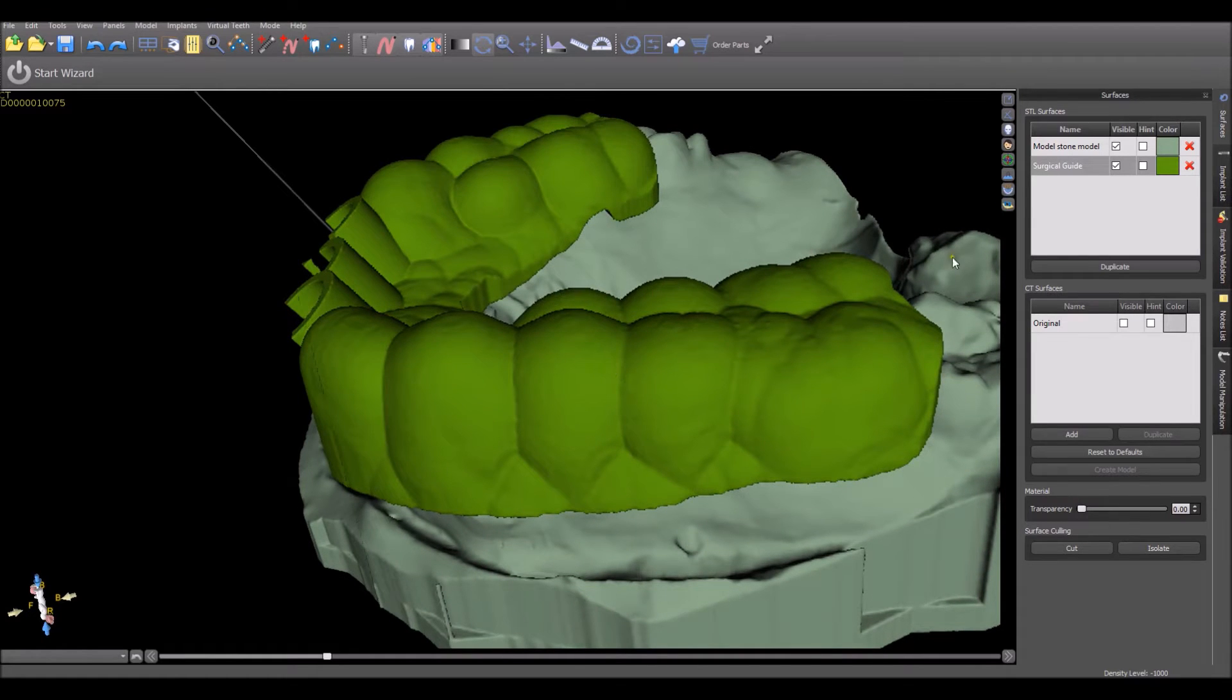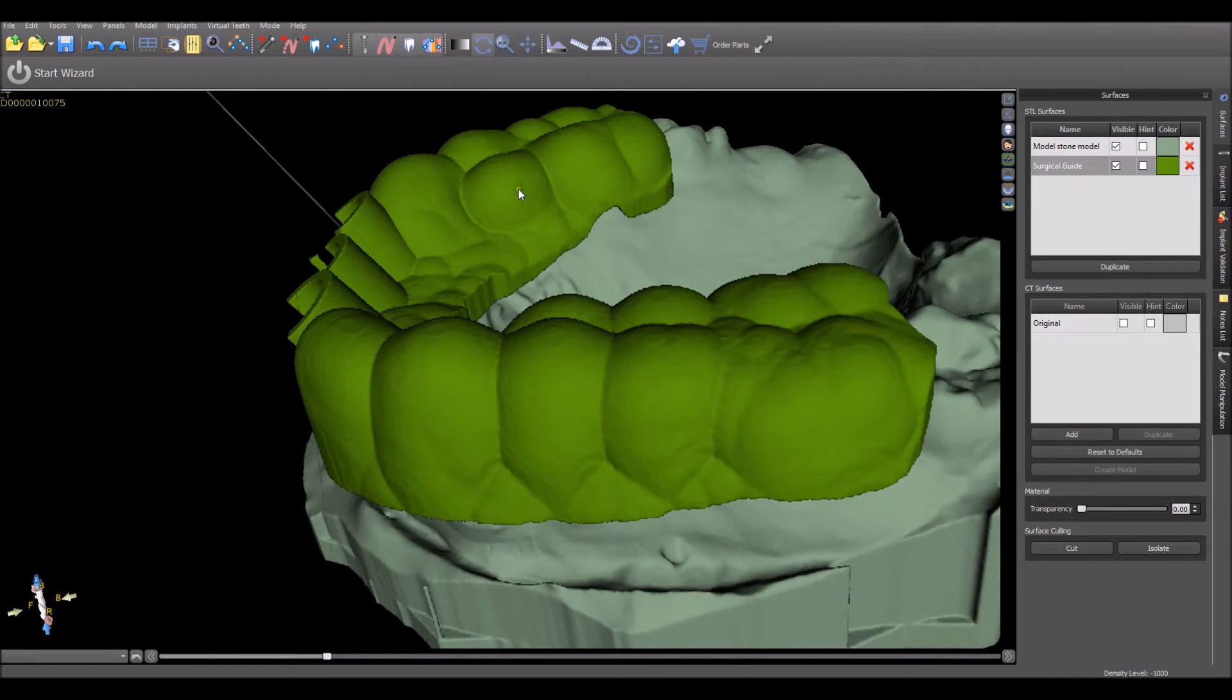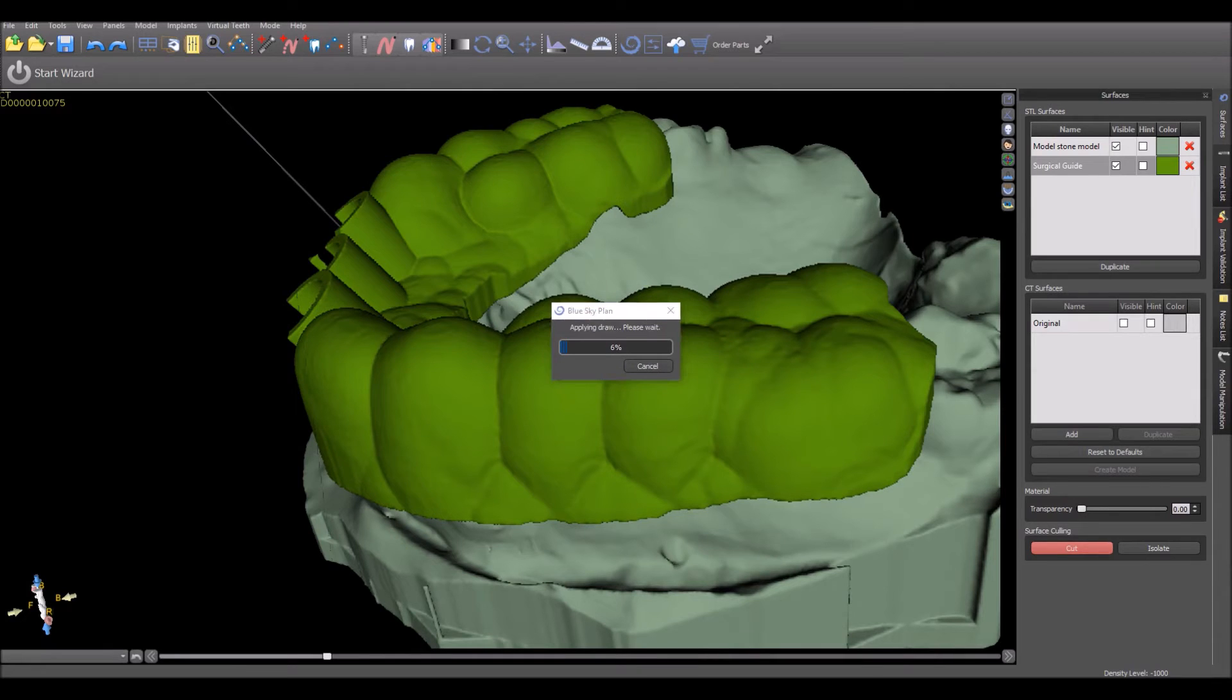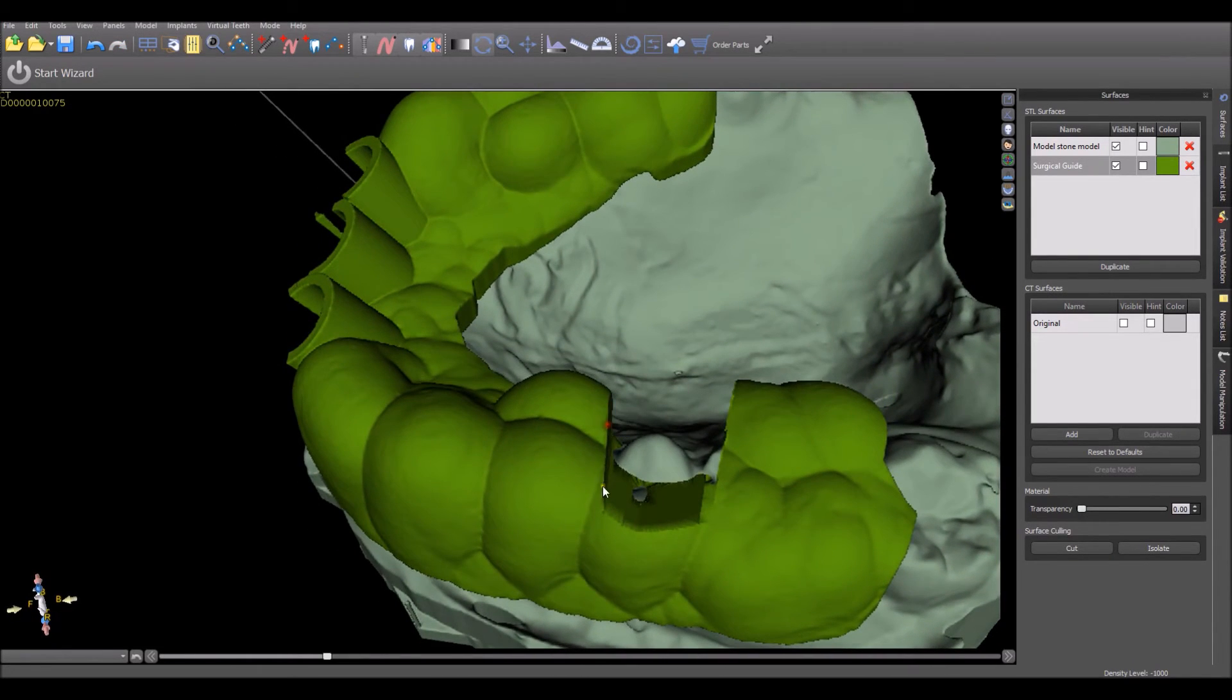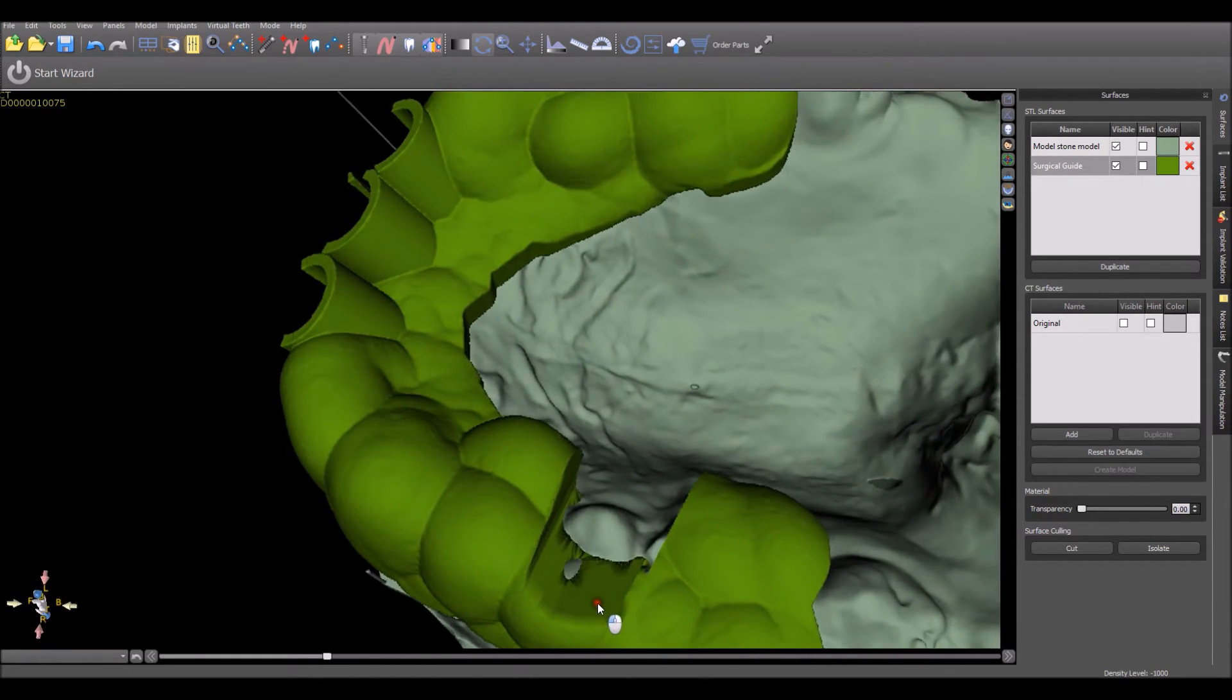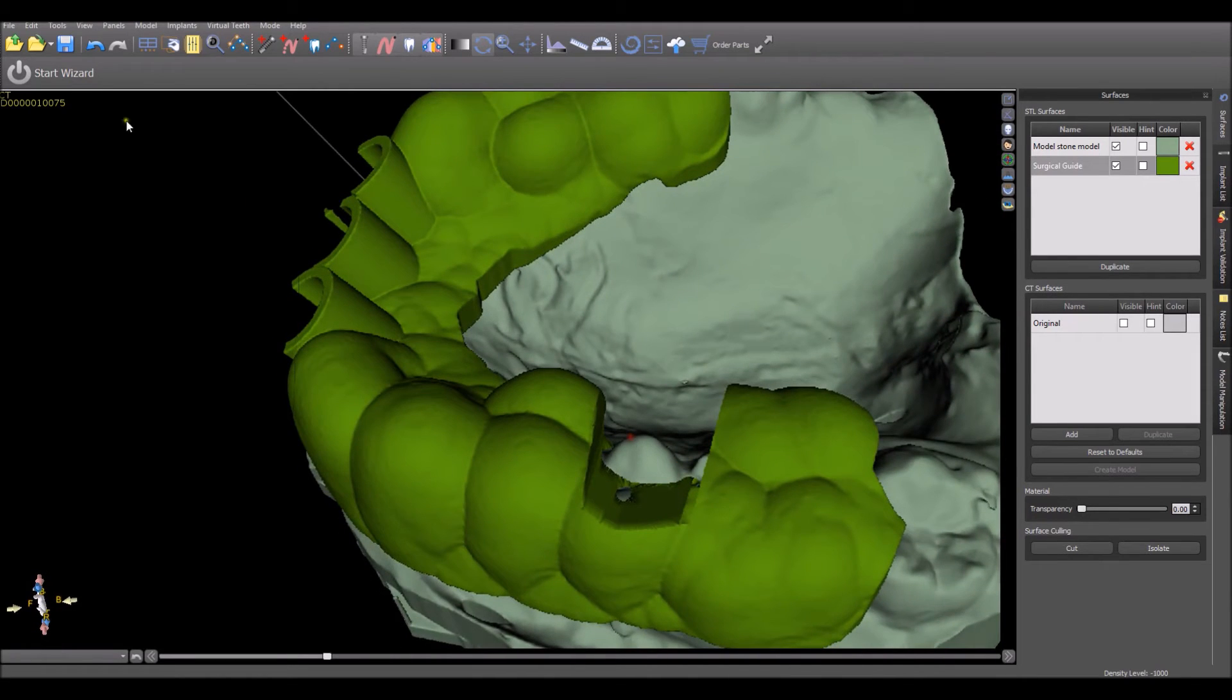As a result, what a user sometimes tries to do is to rotate or pivot, such as we have it now, so that there's no second part of the surgical guide behind the first part. And then, they perform the cut similar to what we are doing now. The result of this is now we have the walls with a steep angle because the surgical guide was pivoted, and we have cut away parts that we do not intend to cut.